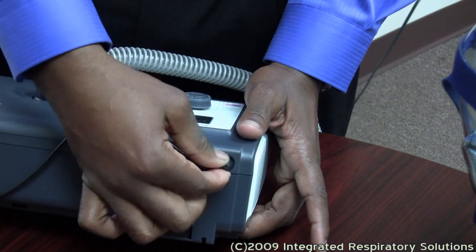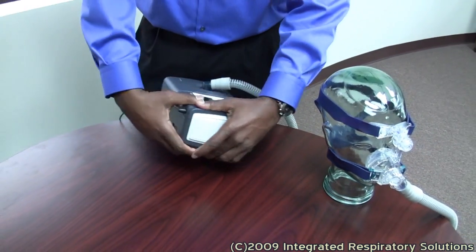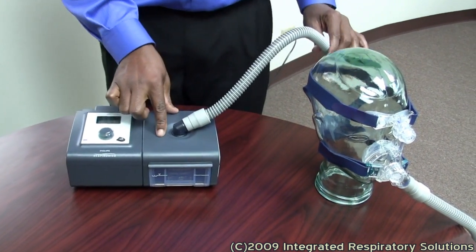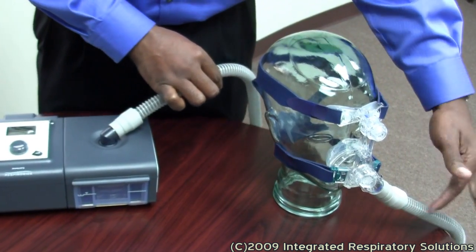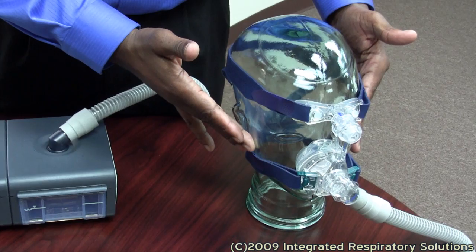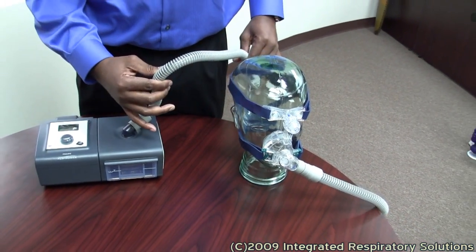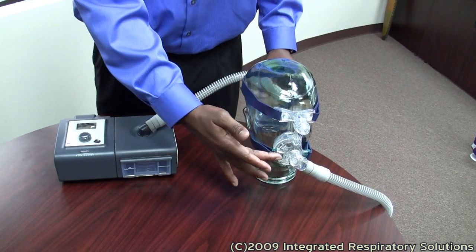Your power supply leads from here to the wall. Your CPAP tubing is connected to the humidifier chamber, and it is connected to the mask, which is then connected to the patient. That is how the positive pressure gets into the airway. The tubing is the bridge between the CPAP device and the patient.